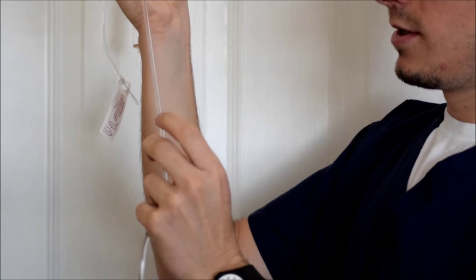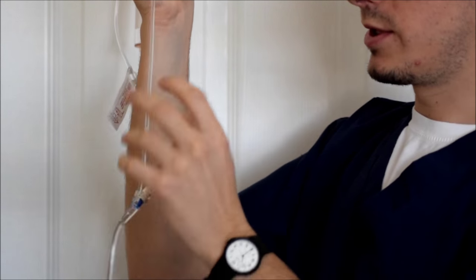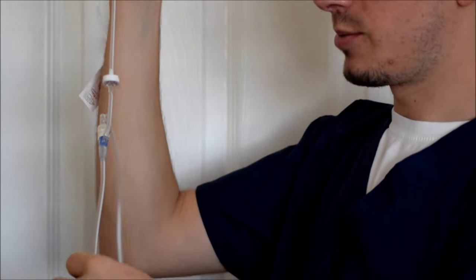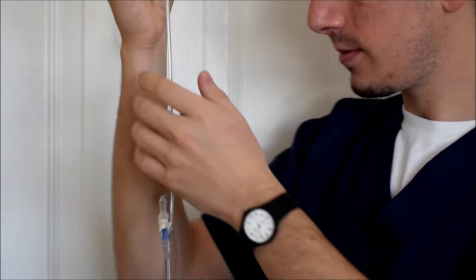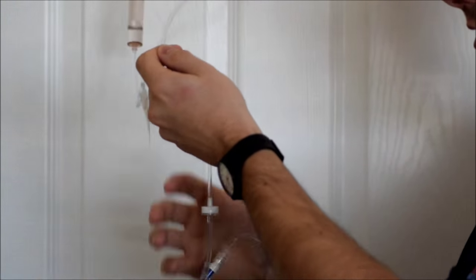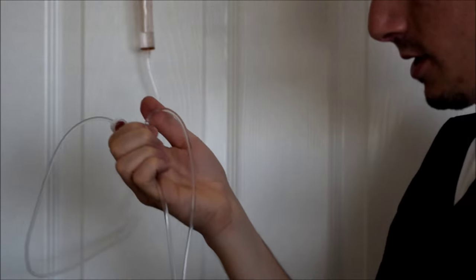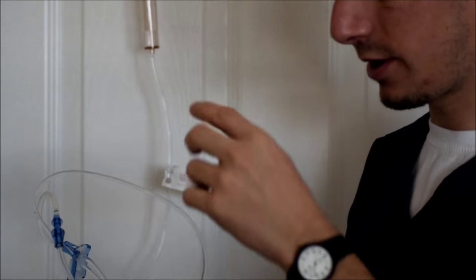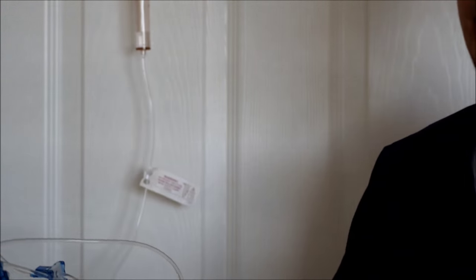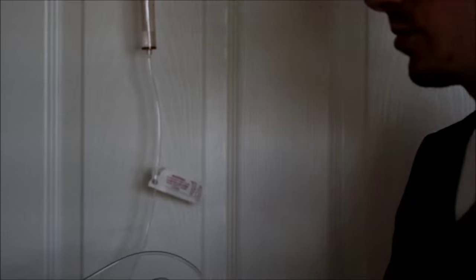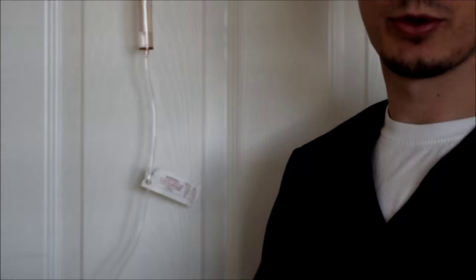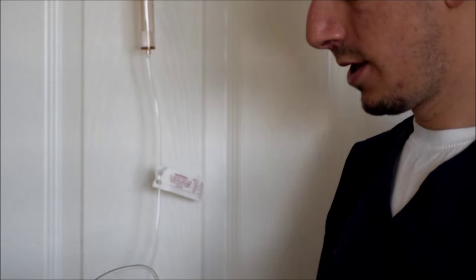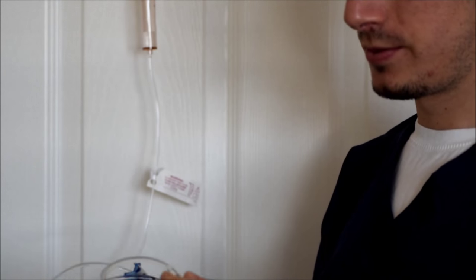You just don't want big bubbles going in, or if there's big bubbles stuck in the tubing, it's gonna make the alarm sound off. The main thing is you just got to keep flinging them. If not, just get a new tubing and reprime your whole tubing if you can't get all of them out.